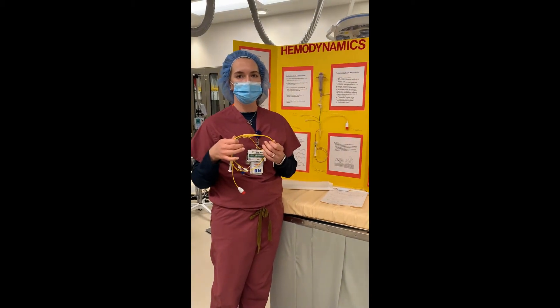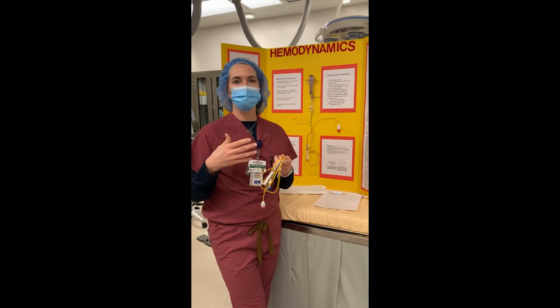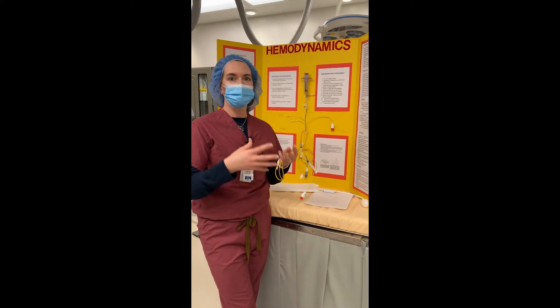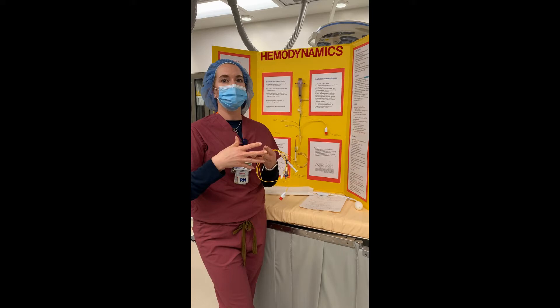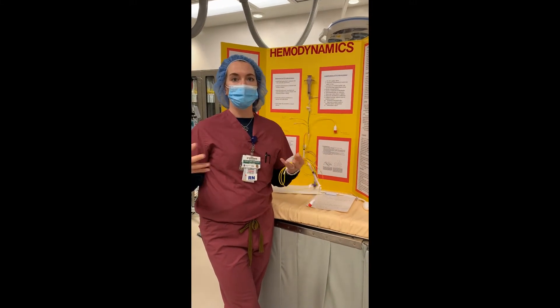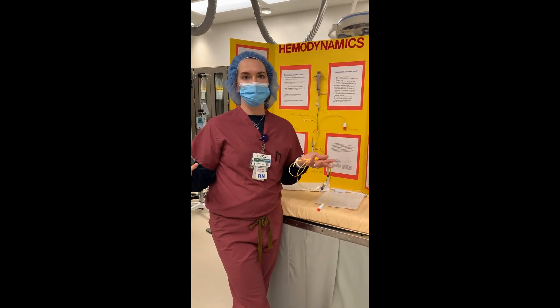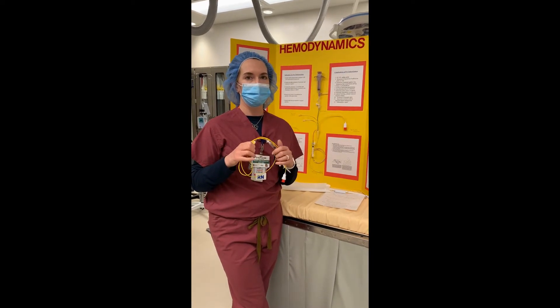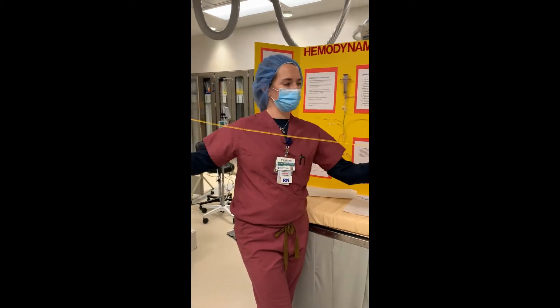We can use it to assess vasoactive drugs, to titrate inotropes, to titrate diuretics, to titrate fluids — we can get all that information from a PA catheter or Swan-Ganz catheter. Upstairs in the ICU we want to leave it indwelling, as opposed to just taking pressures down here in the cath lab, which would be a snapshot of somebody's hemodynamics. Upstairs we can monitor it long-term and make real-time medication changes for these patients.